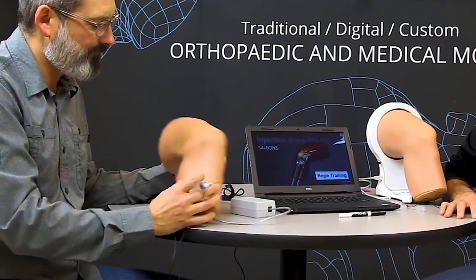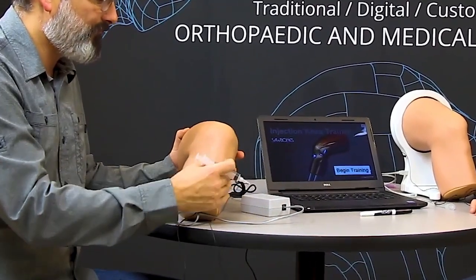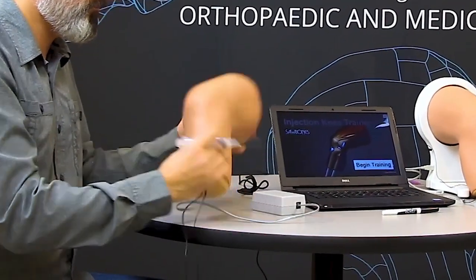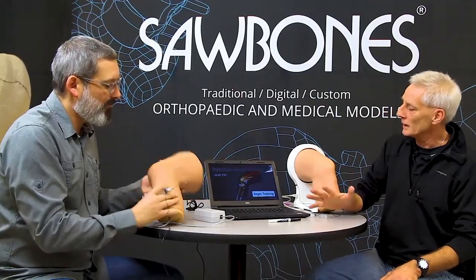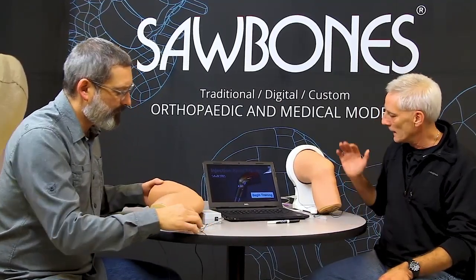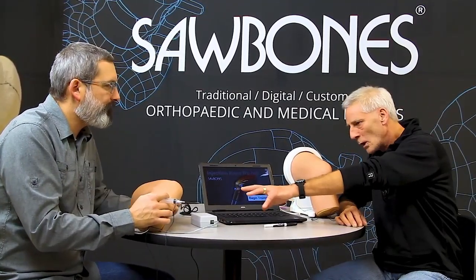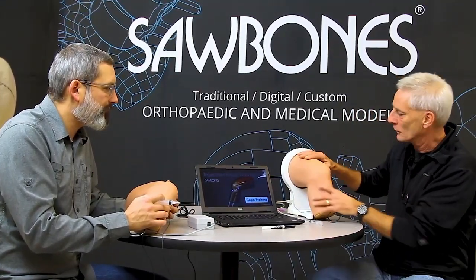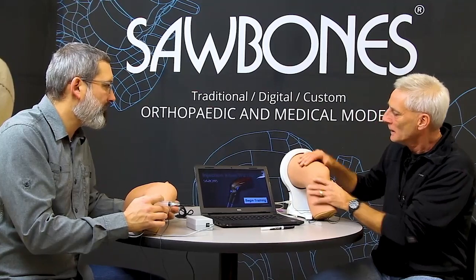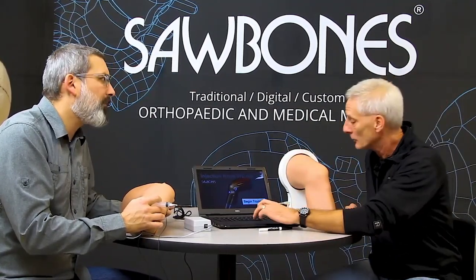You have your hands on our legacy product there of 20 plus years. It's been a fine basic unit — just audio feedback where you hit a conductive point and you get a tone. What's really lacking are the discrete targets that an injector needs to know and be able to feel and see. So what we've done is taken that basic anatomy and durability and married it up into a system that provides visual feedback as well.